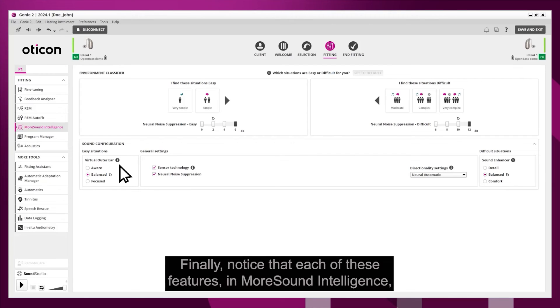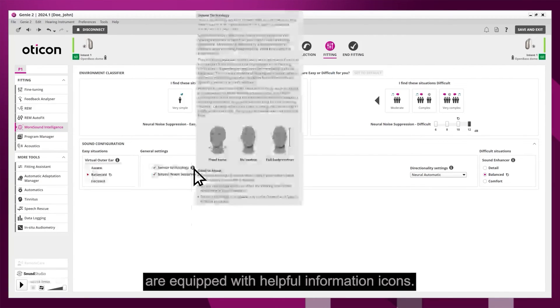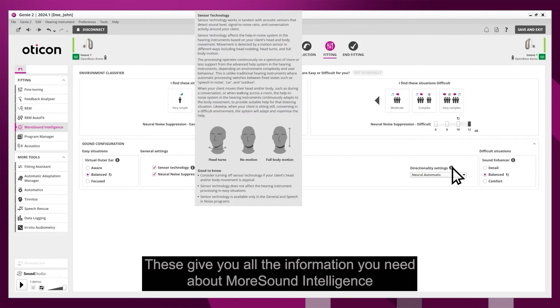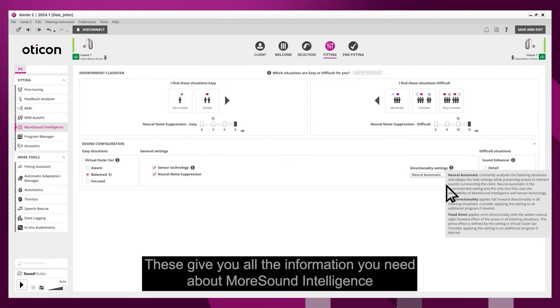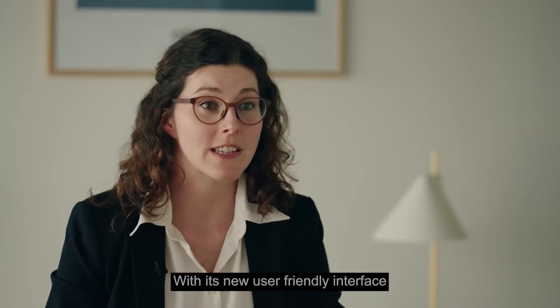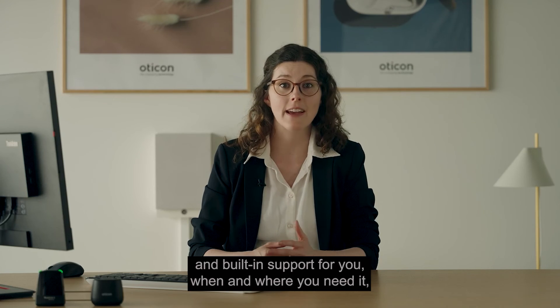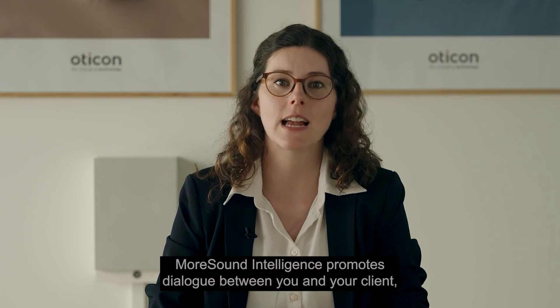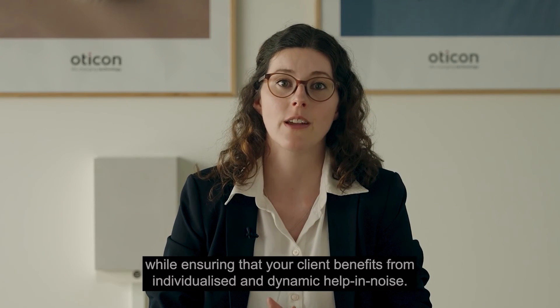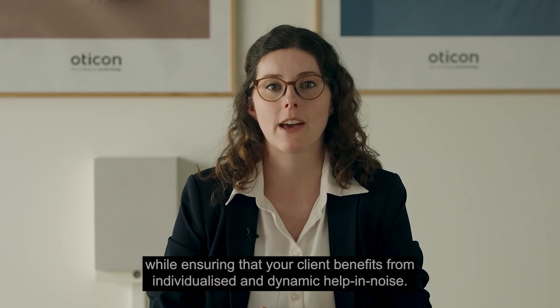Finally, notice that each of these features in Moresound Intelligence are equipped with helpful information icons. These give you all the information you need about Moresound Intelligence right within Oticon Genie 2. With its new user-friendly interface and built-in support, Moresound Intelligence promotes dialogue between you and your client while ensuring that your client benefits from individualized and dynamic help in noise.